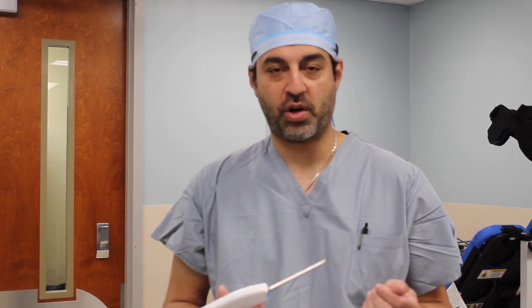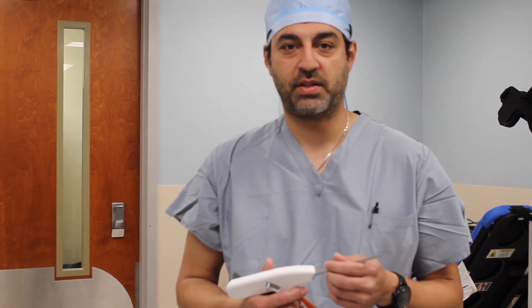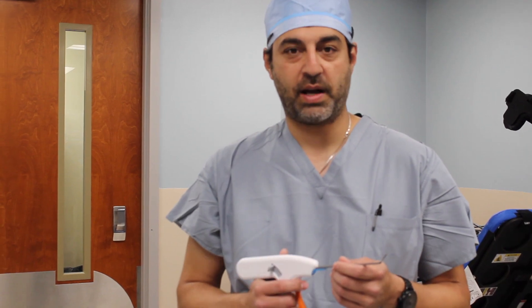I like that it's intuitive. I have a different control for putting the bottom jaw out versus another one to pass the stitch. Overall, I think this is a better option.